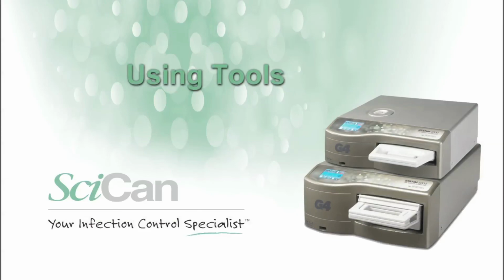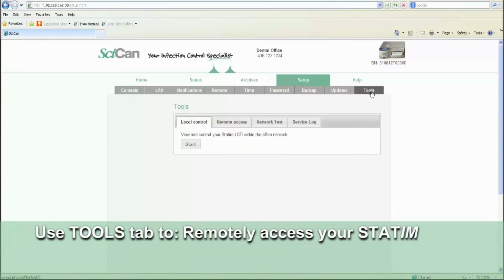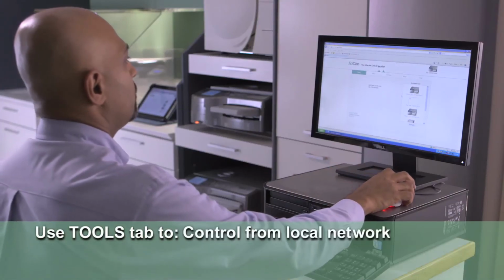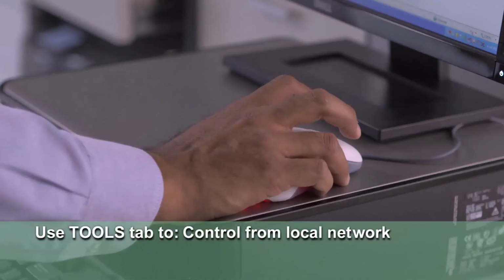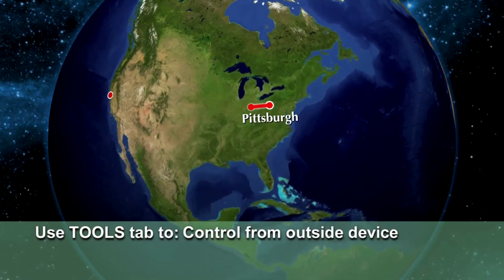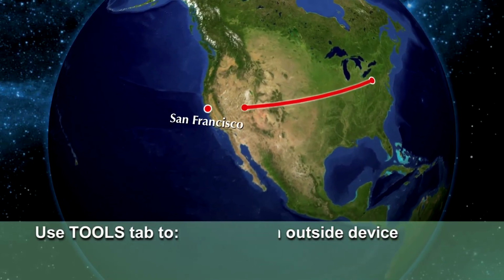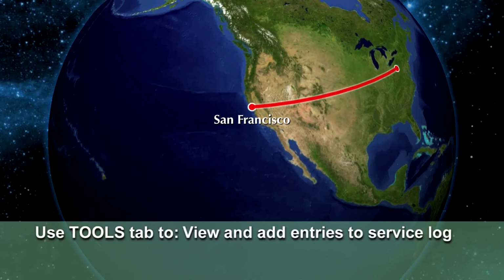Using Tools. The Tools tab is where you can access the unit locally or remotely and where the service logs reside. Accessing the unit locally means you can take control of the G4 within the office network. Your device is on the same network as the G4. Accessing the unit remotely means you can take control of the G4 from anywhere in the country. Your device is on a different network from the G4. You can also view and add to the unit service logs through this menu.